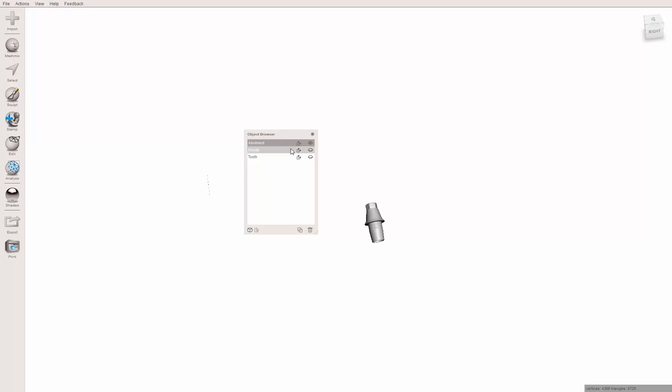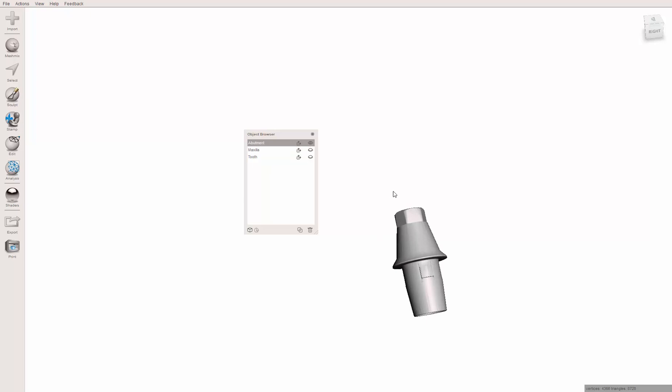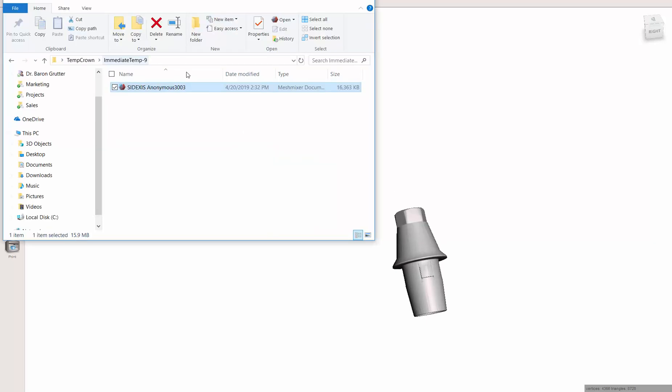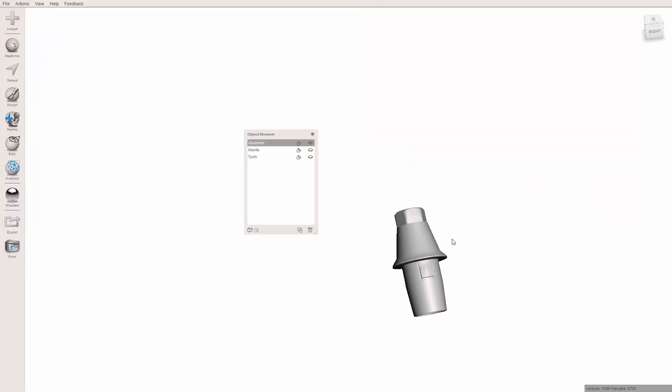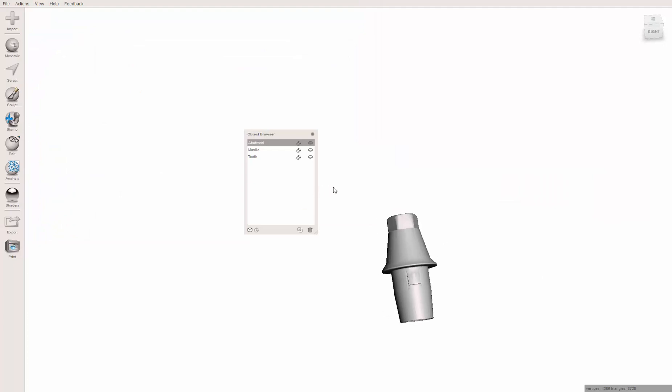So again, I could have exported all three different things by themselves, but now I don't have to have multiple files in this folder. I just have them all separated within this project here. So anyway, I'm going to cut this video off here. That should get us started up for the next two steps, which are the two different ways to make a temp.